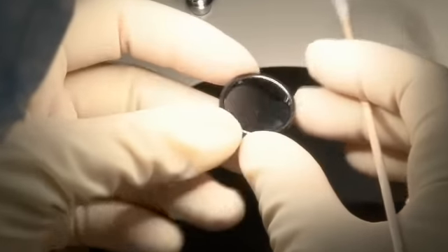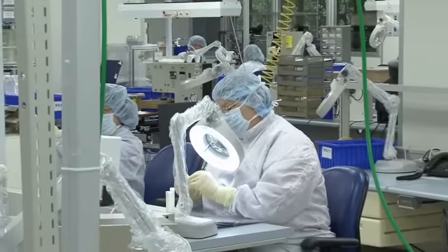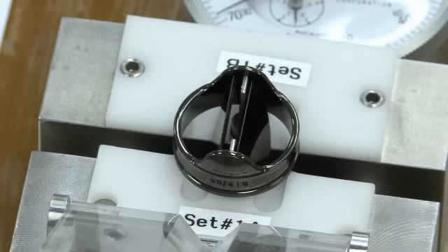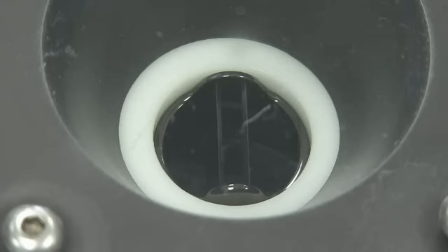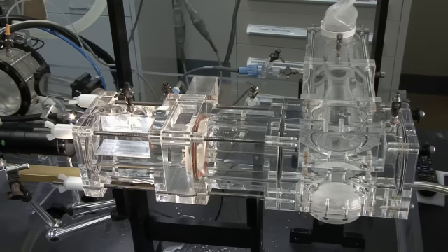The final stage of operation is the valve assembly process and inspection processes to ensure quality. The leaflets are inserted into the orifice, proof tested and leak tested. The valve leaflet operation is tested individually before going to sterilization.